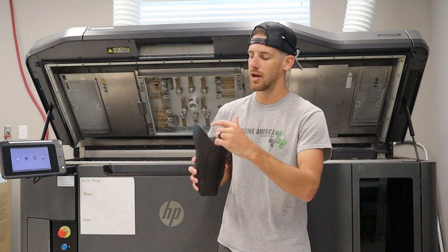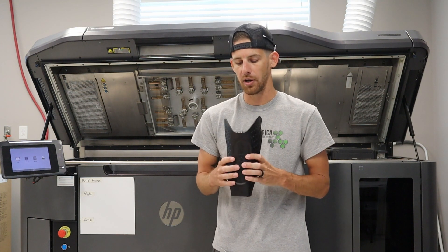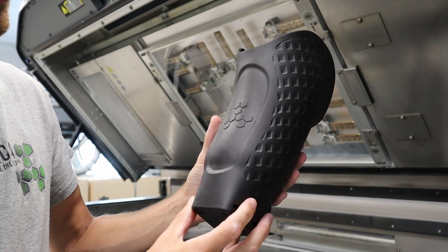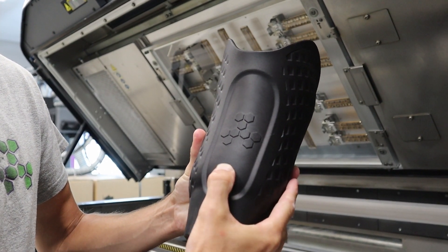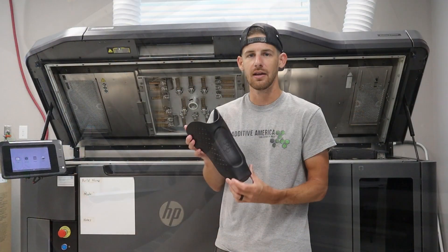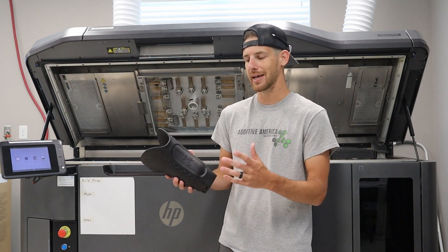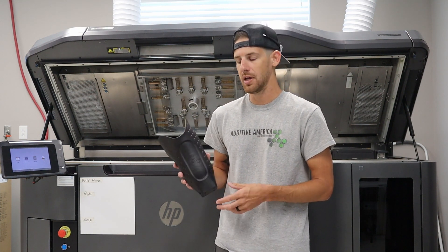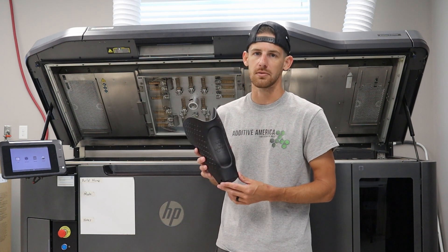One of the cool features on this is we've got a rigid socket where we need it to be, with plenty of strength where we want it, but we also want a little bit of relief in the front. So we made the digital model just a little bit thinner in the center there, and it allows the patient to have a little bit of relief when they're walking and the prosthesis is firing. Again, it can be wherever there needs to be relief for any particular patient — it's not off the shelf, it's a true custom fit.